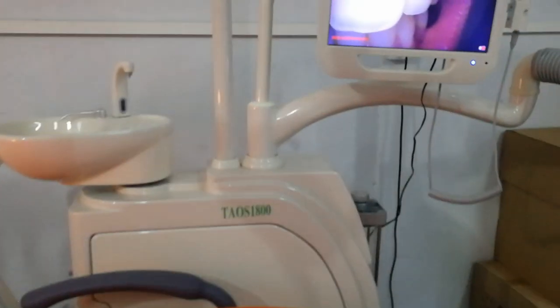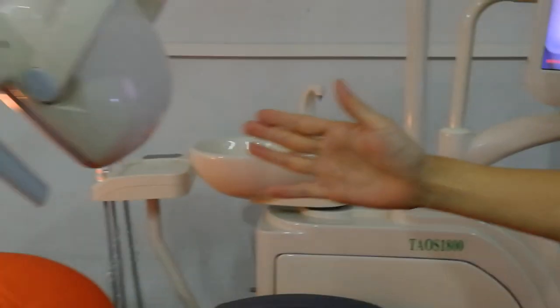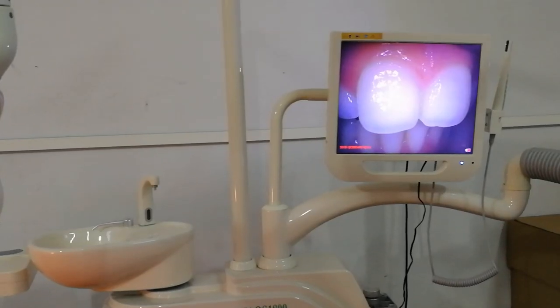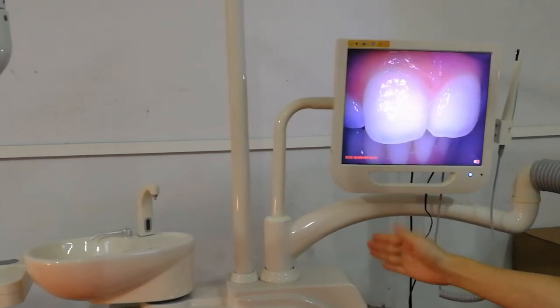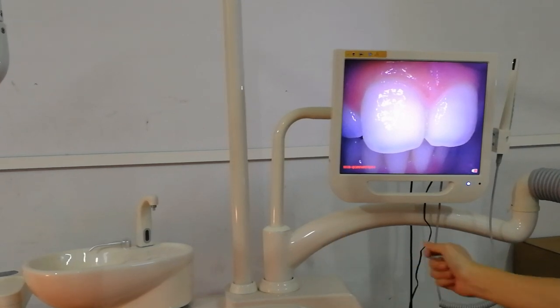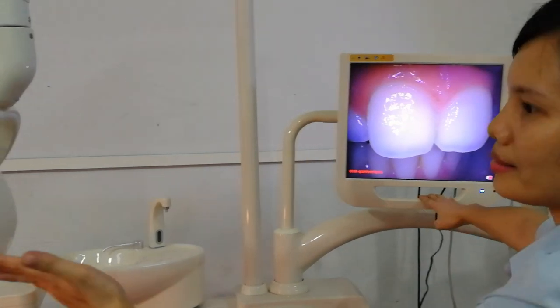We will see the light holder. It is 80 cm high. It is designed so the lamp has no conflict with the dentist's head. We modified the LCD holder placement — it is put on the balance arm and separated from the light holder, so when we move the LCD, it will not conflict with the light.